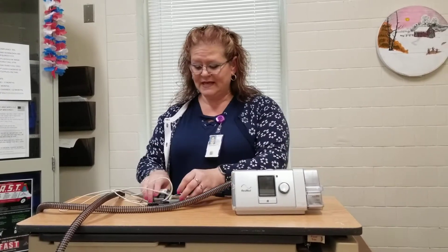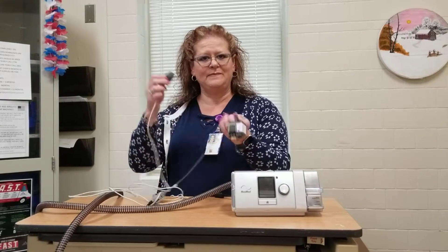Hi, my name is Robin. I'm here at the Salem VA Medical Center. If you're watching this video, your doctor has ordered pulse oximetry, and what that's for is to see how well your oxygen is holding up with your CPAP machine. This video is simply to show you how to connect the pulse oximeter to your CPAP machine.